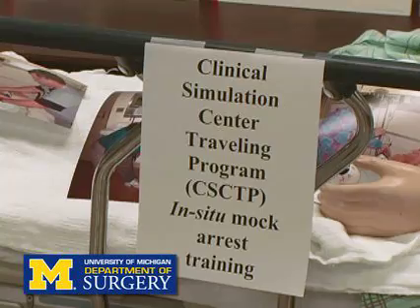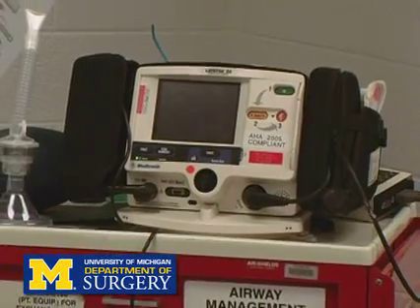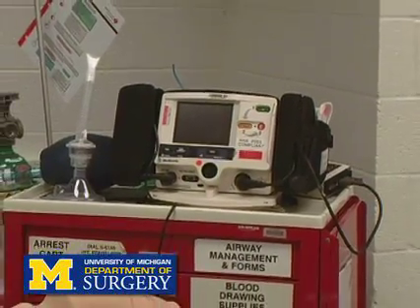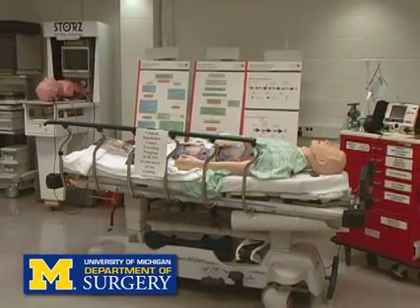One of the exciting things underway now is to take the simulation center capabilities and move them in situ into the clinical arena. A lot of this is made possible by the fact that the human patient simulators can be portable and can be brought directly to the ward, the operating room, the emergency room, what have you, and then have teams training in crisis situations using the simulator to highlight the educational issues.